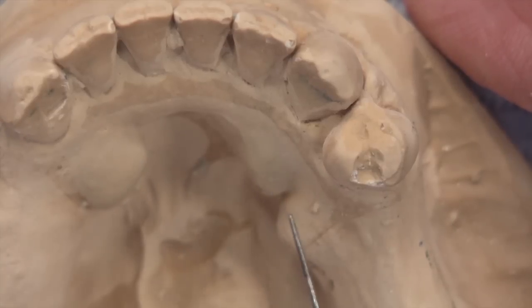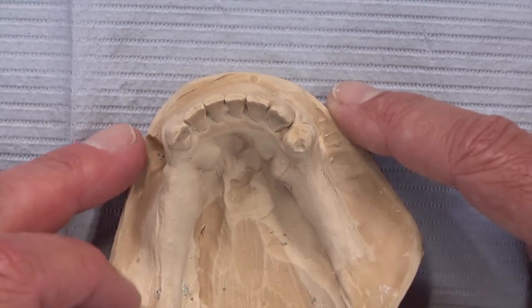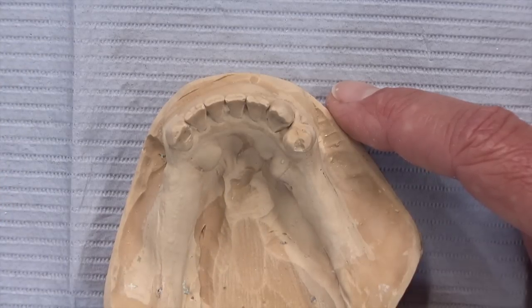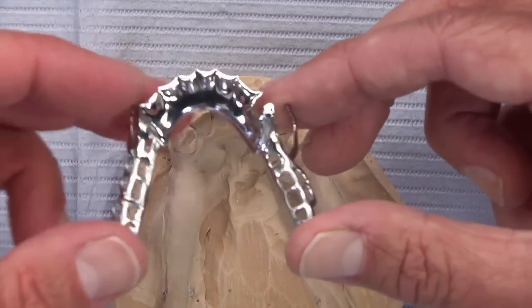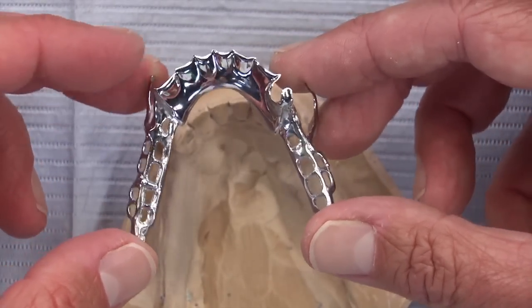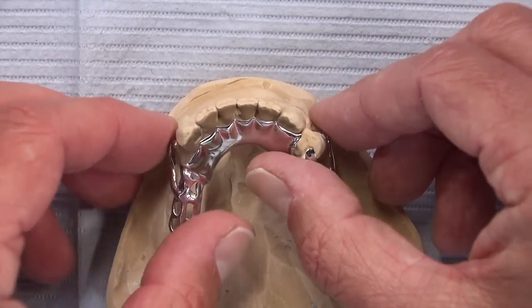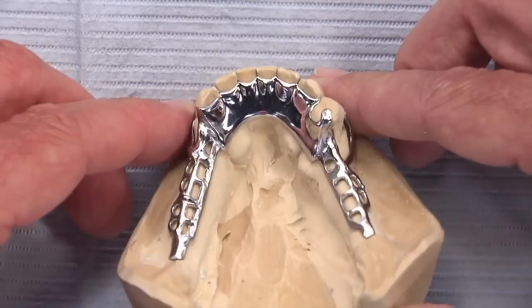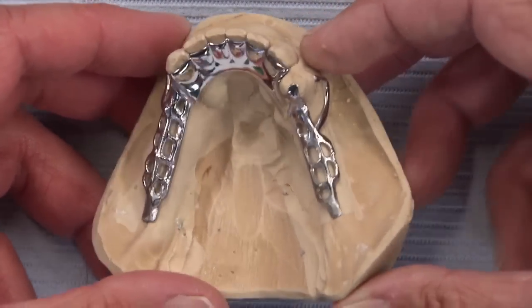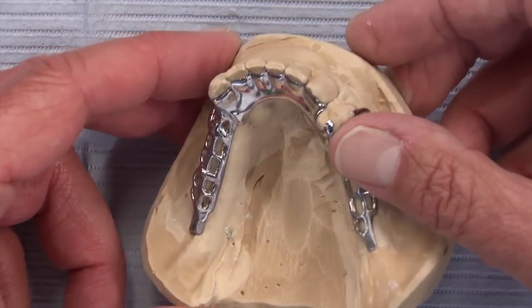We also see some rather prominent Tori — pull the camera back a little so you can see those Tori down there. That's not going to allow a lingual bar major connector; we do not want to impact those Tori. So the lab designed it again using a lingual plate major connector, designed above the Tori and relieved, and the rests will certainly function well as vertical stops. We stand a much better chance of the patient not returning to this doctor in pain from the Tori or from this partial over-seating down into the tissue and stripping it away from the teeth.